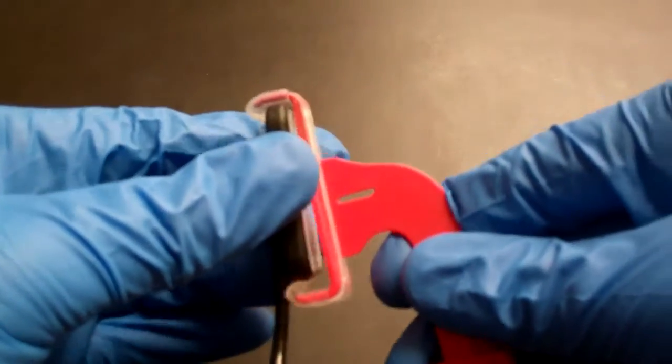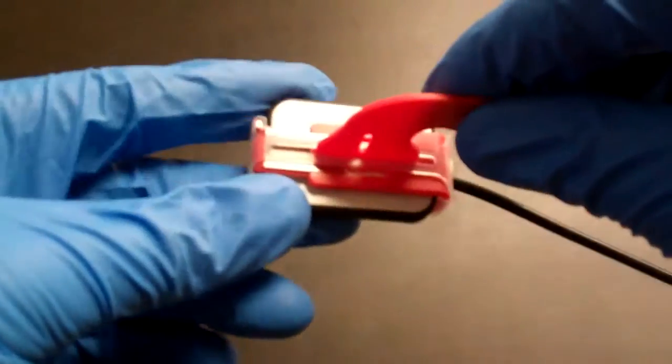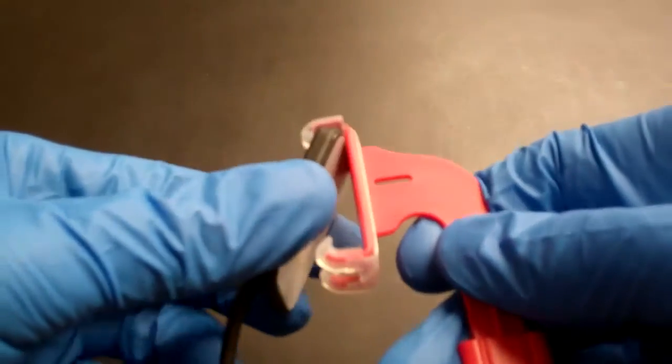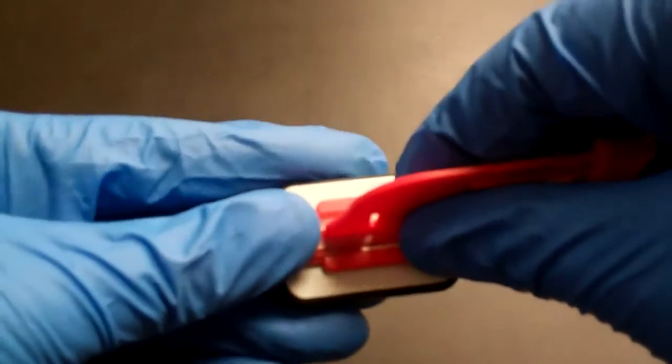And you can see the best way to load the sensor—and normally during use, of course, we'd have a sensor cover on it. You just clip the sensor with that adjustable clip and slide it up until you get the sensor in. Center it there. That would be a horizontal bite wing.